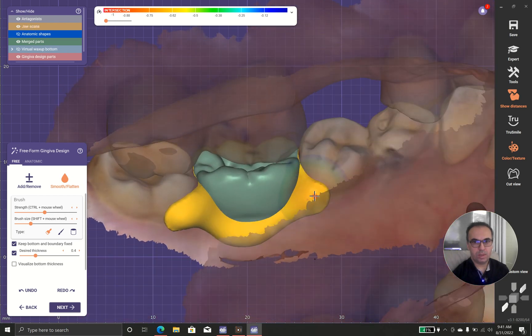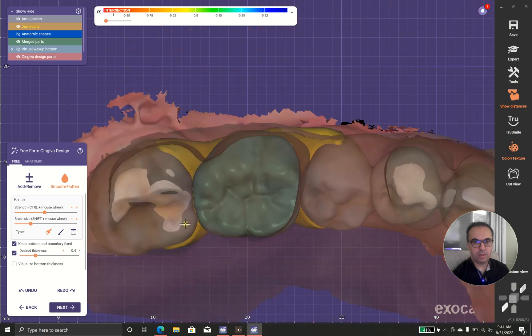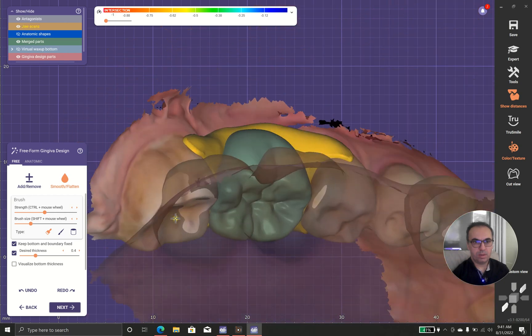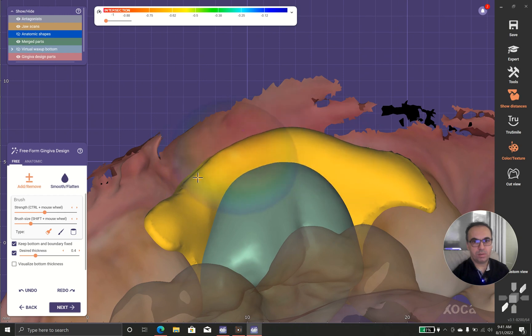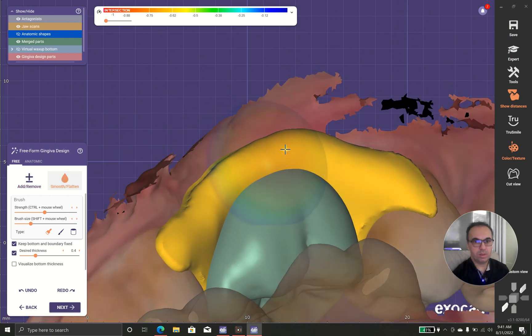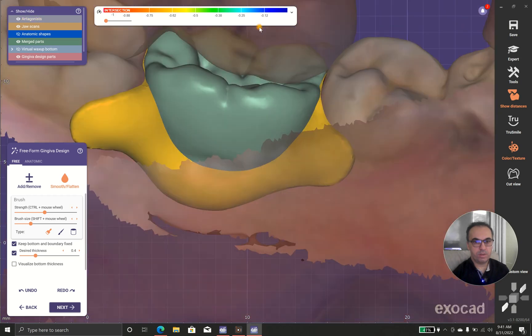I'll make it a little bit thinner, but not too much thin, because in case you make it too thin it will get fragile and it will break easily.